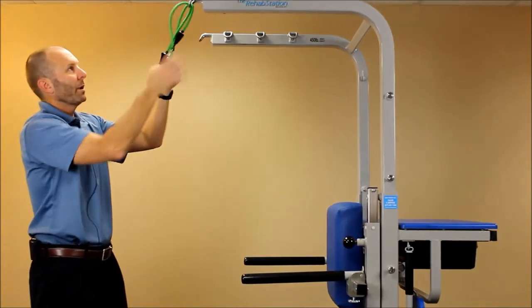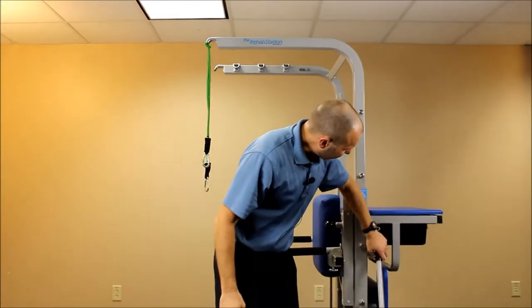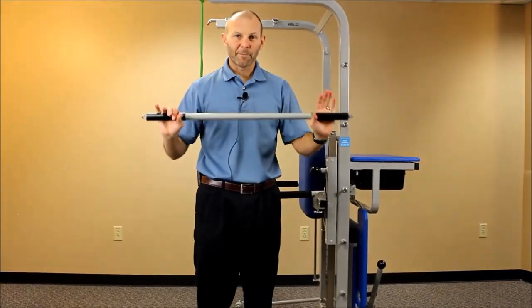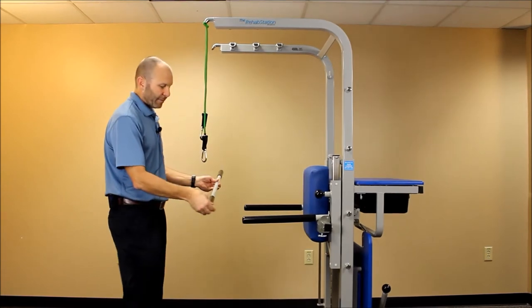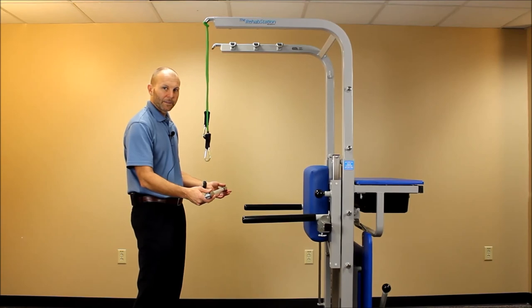We also have on the side a bar that can be used for any type of bilateral activities — pushing, pulling, curls, and so forth. In that case, you would attach a carabiner to each end of this bar when doing those activities.